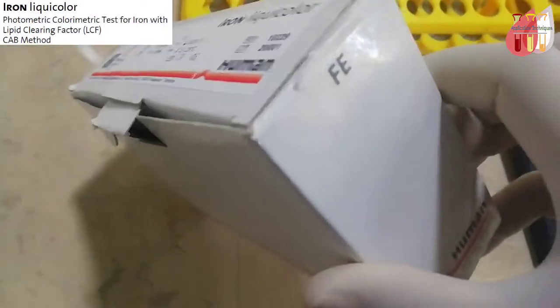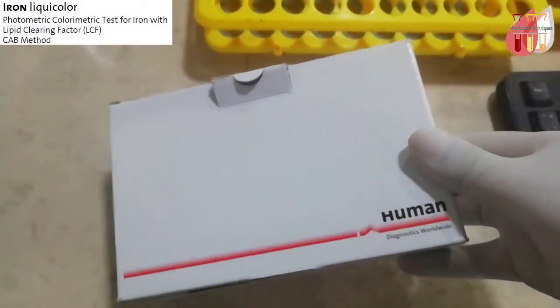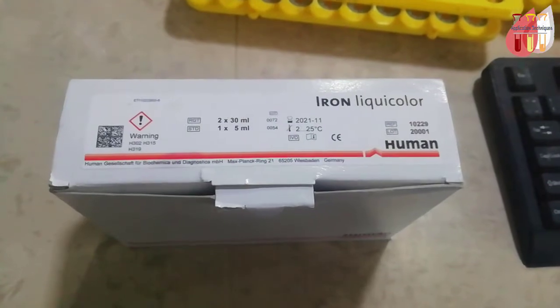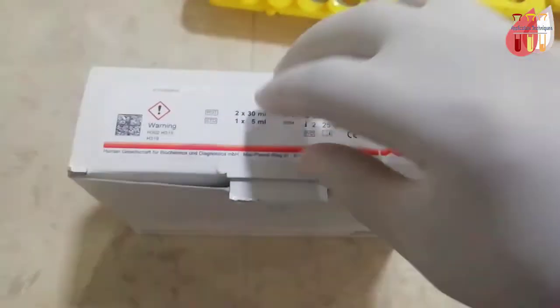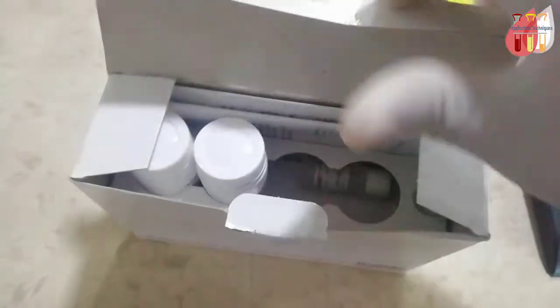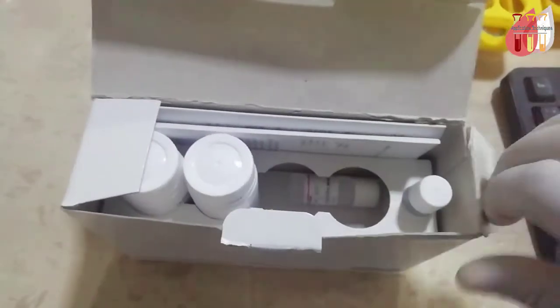This is an iron kit manufactured by Human GmbH Germany. The kit comes in two pack sizes: 60ml and 200ml.